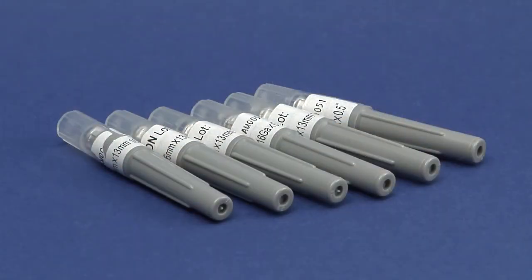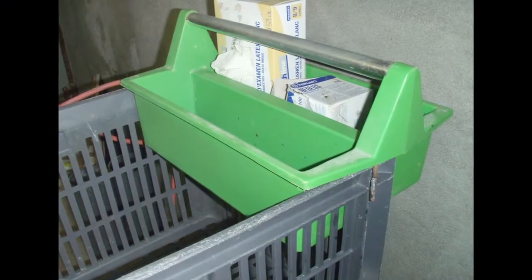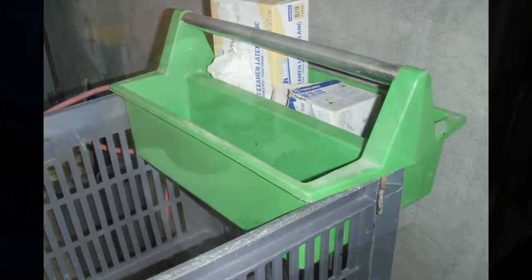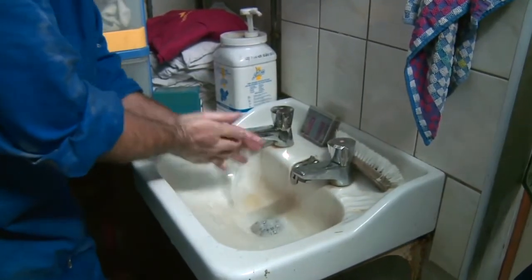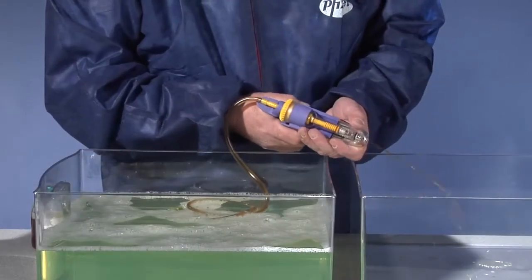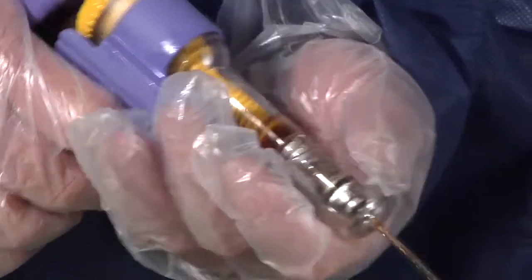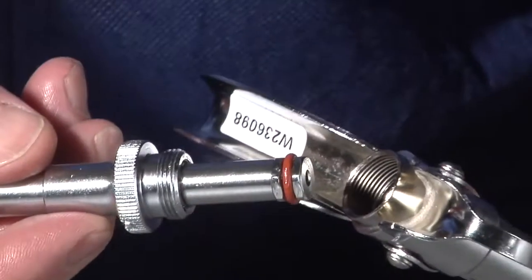For the sake of convenience, spare needles and other equipment should be kept on a trolley near the pen. If Improvac is spilt on the skin at any time, it should be washed off straight away with soap and water. When the vaccination session is over, disinfect and then dismantle the injector in accordance with the manufacturer's instructions.